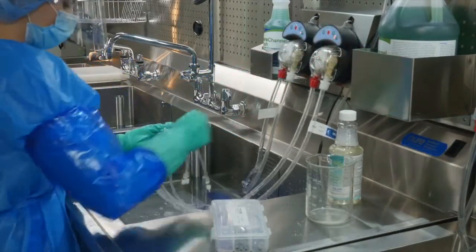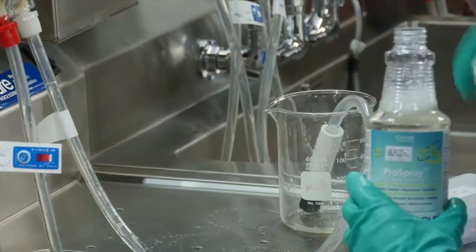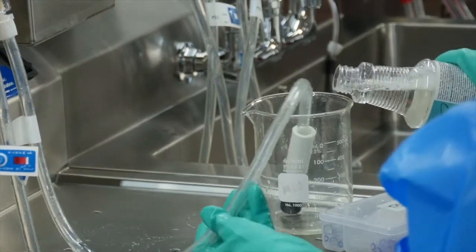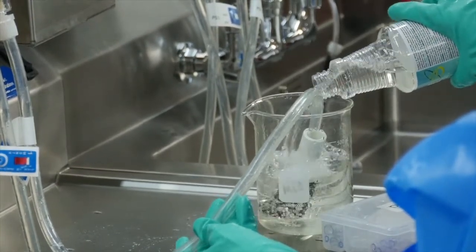To disinfect the tube sets, place your drop down tube in a container with intermediate level disinfectant. We recommend Pro Spray which does not contain bleach or alcohol and it is safe for use with flexi-pump tubing.